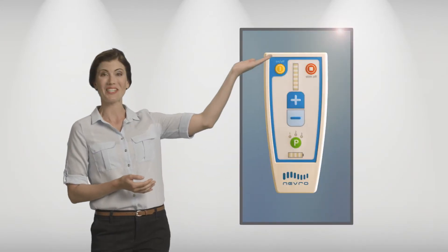Hi, I'm Bridget, and I'd like to talk to you about your Nevro remote. It's quite simple, as you'll see.